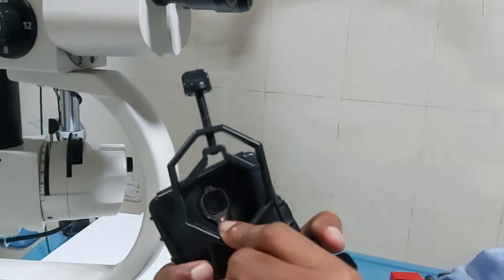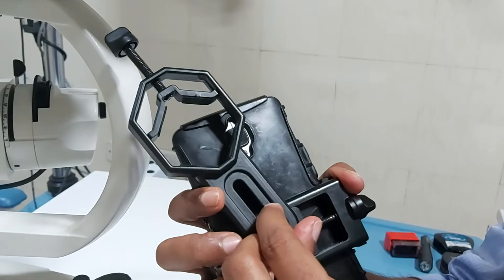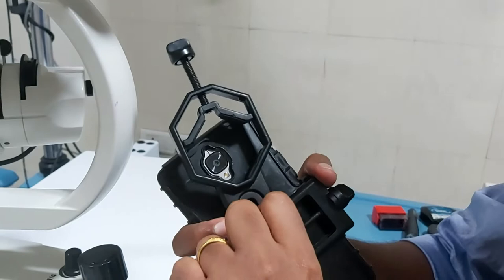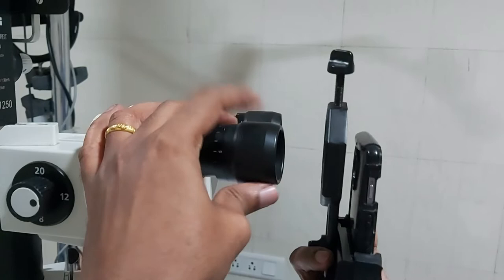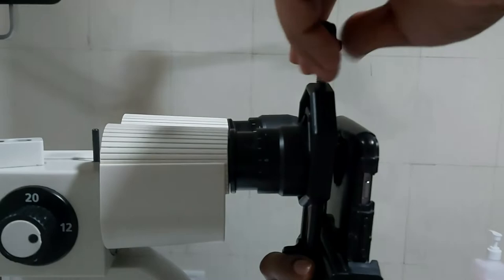If the camera is off to one side, you can turn and place it to that side. Since this is in the center, I place the eyepiece holder to the center and then place it onto the eyepiece — you can push back the eyepiece in some eyepieces. Adjust so that it is fixed securely onto the eyepiece.